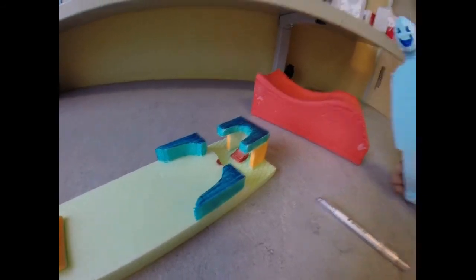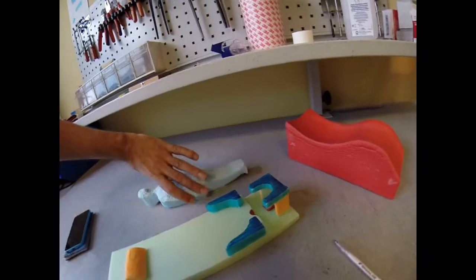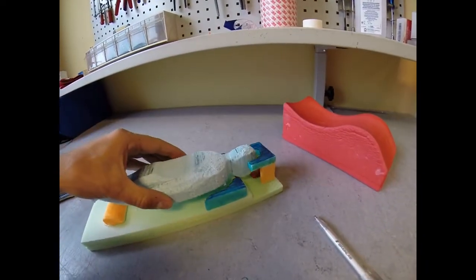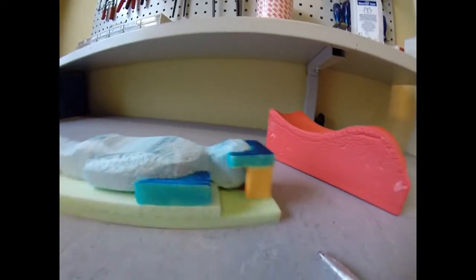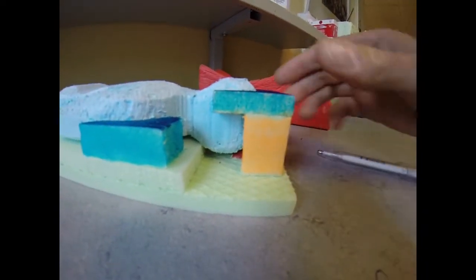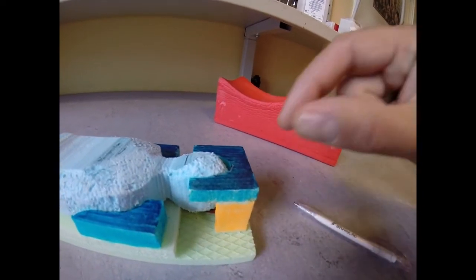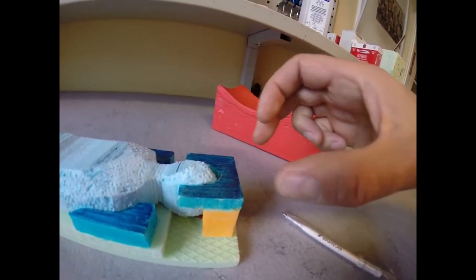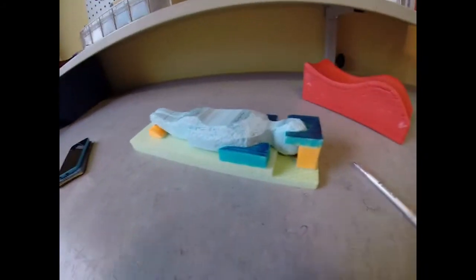So I still got my little friend over here to show you how they did it. So it ended up like this, see. Hope you can see this very well - so the chin and the forehead was supported. They cut this polystyrene part in exactly the same size and everything was glued together, even the shoulder supports.